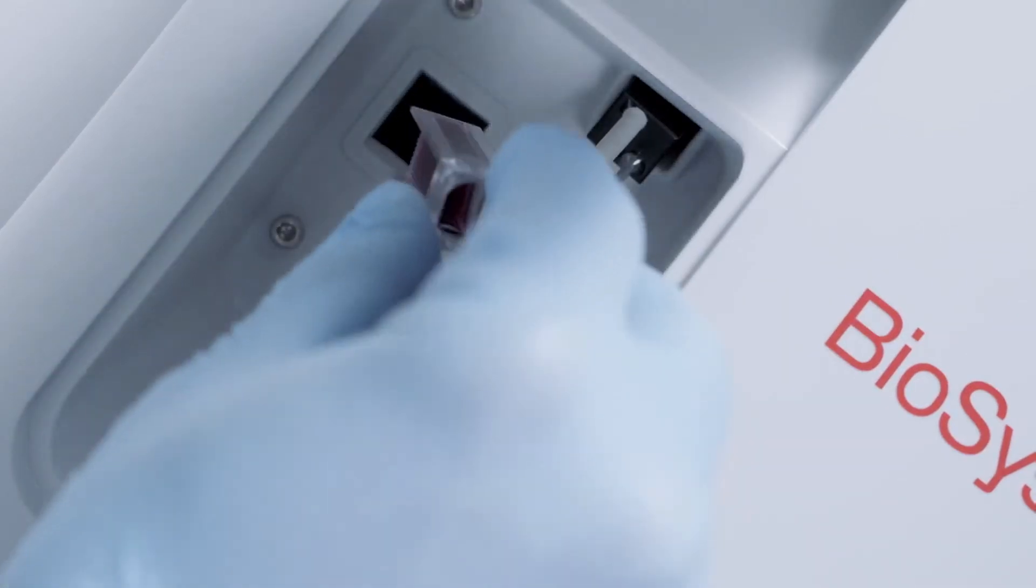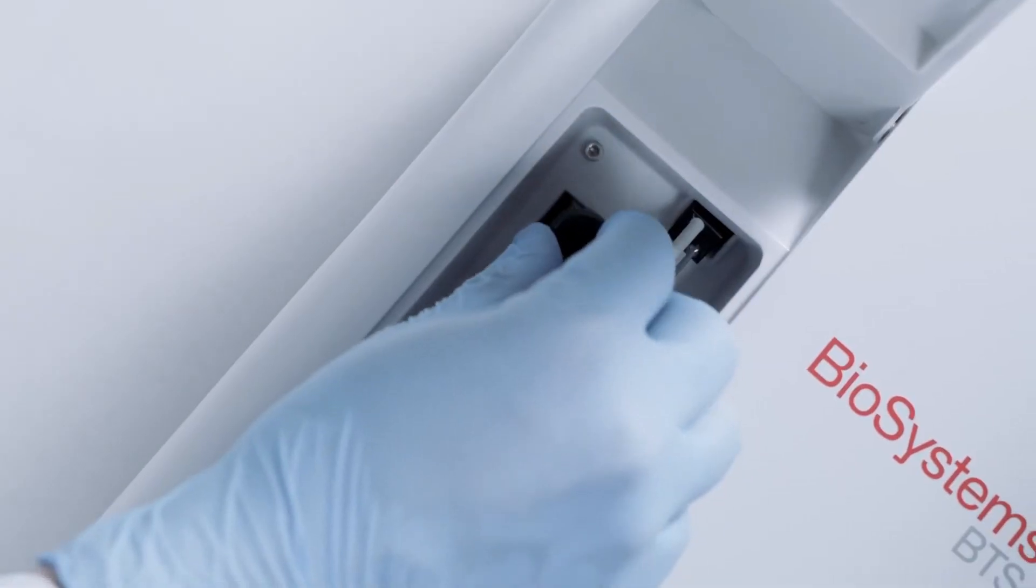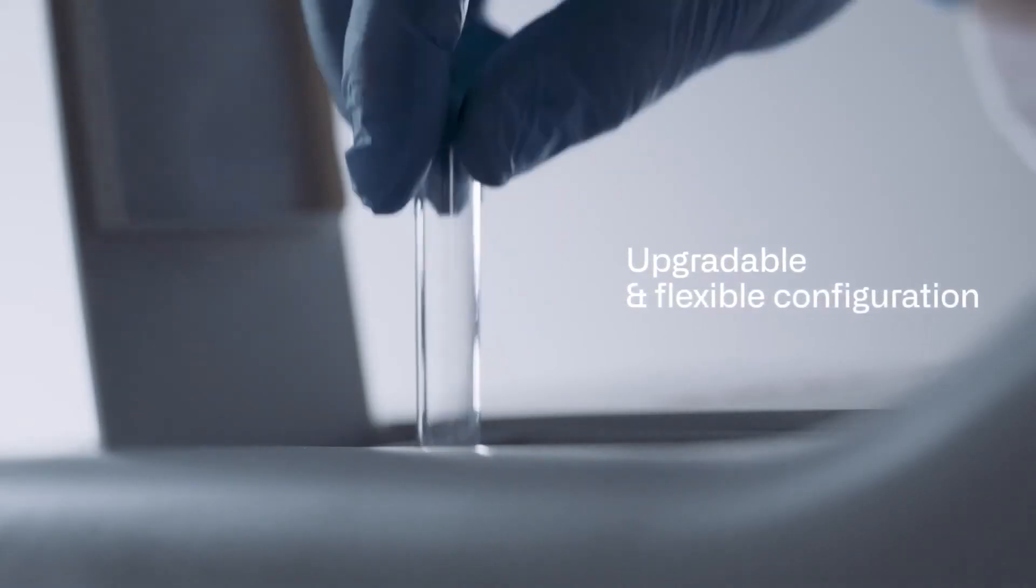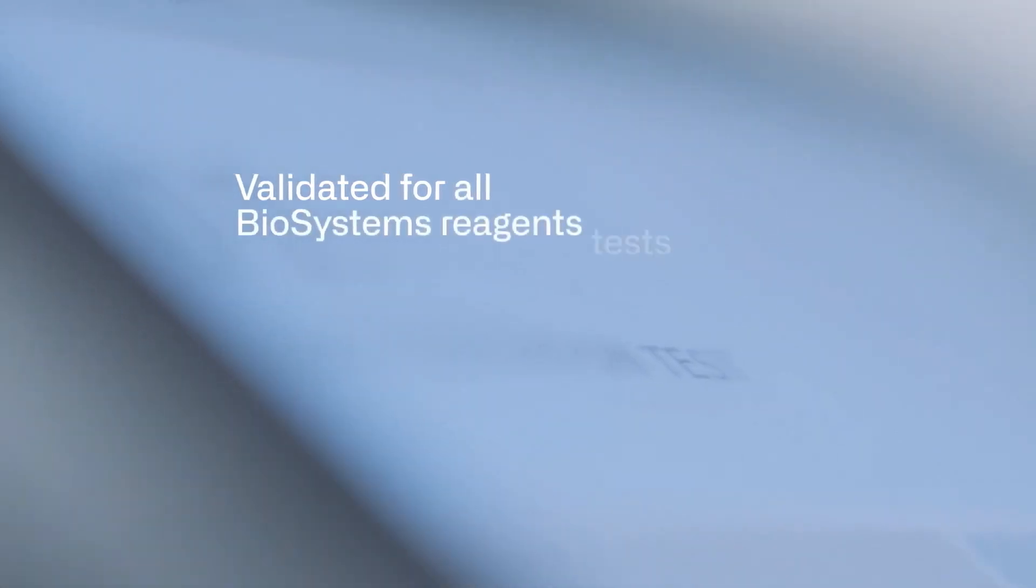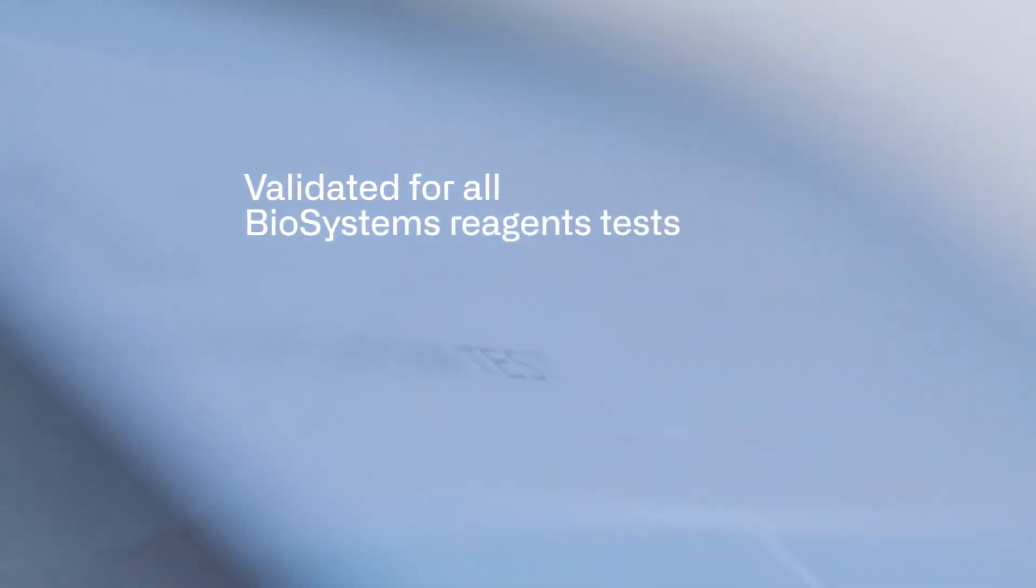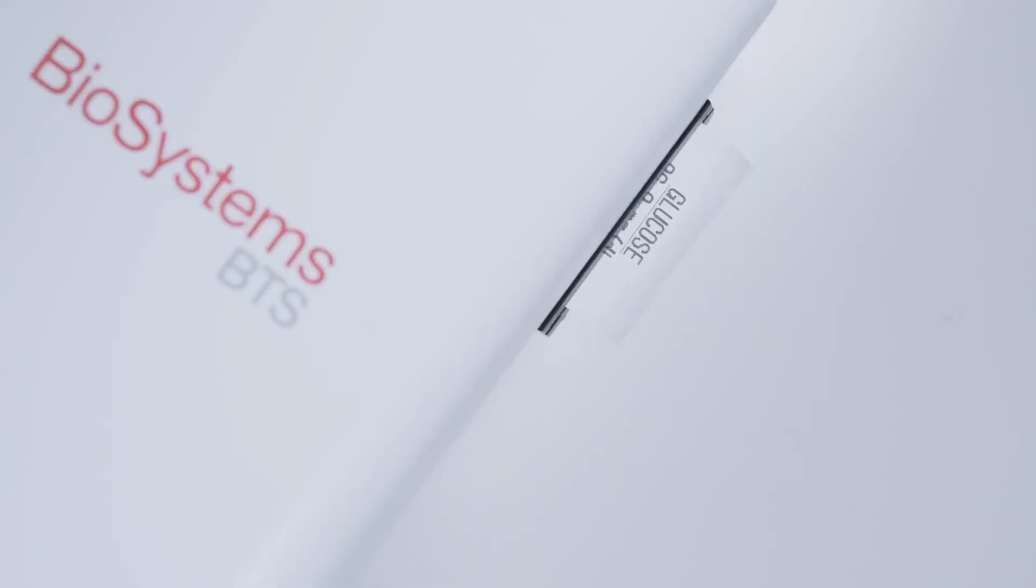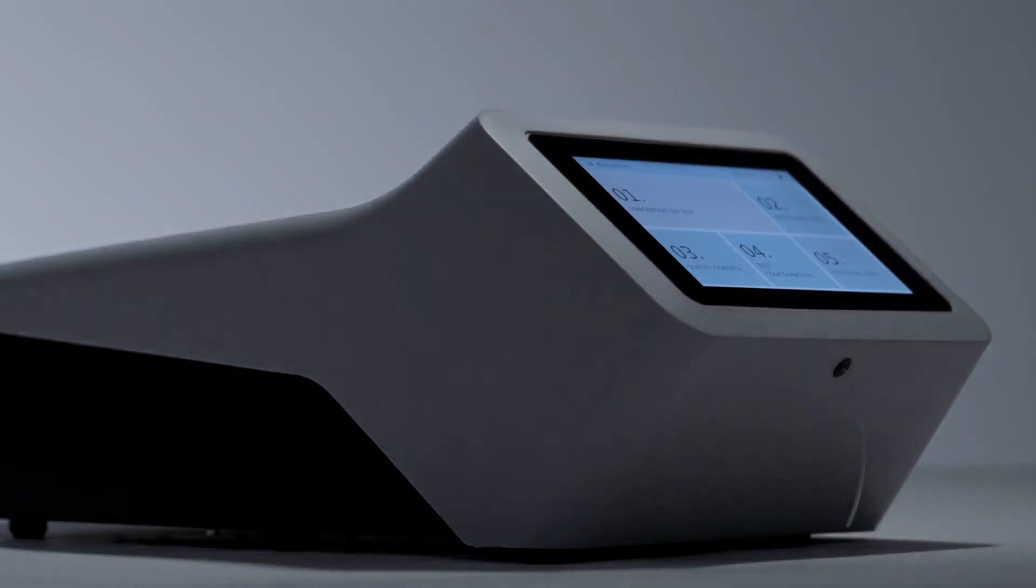For this, the samples and reagents are not pre-prepared and stored, but set up separately each time a test is conducted. That is why it is semi-automatic. Though this slows the process of testing as a whole, it has a great benefit as it provides tremendous flexibility when the type of tests differ, making the reagents vary each time.